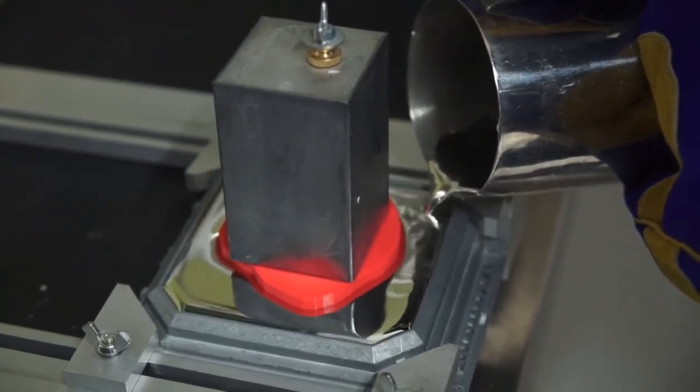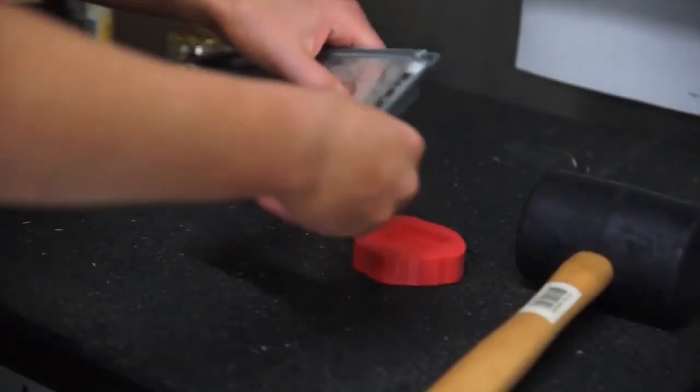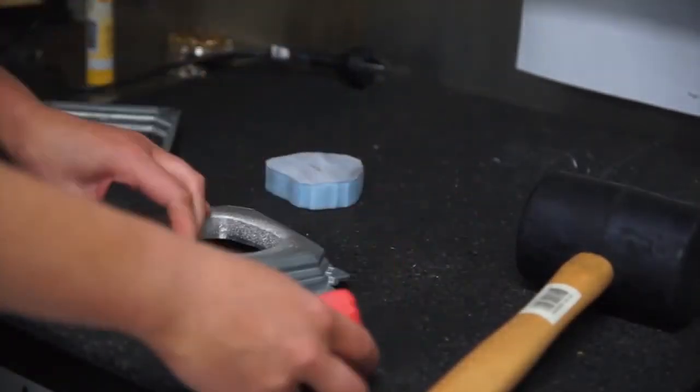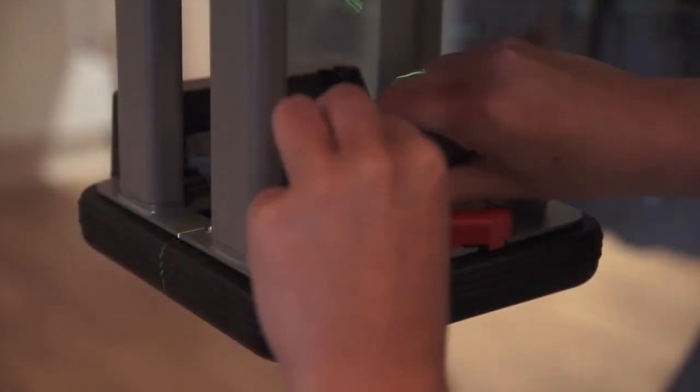No other preparations necessary. Once the alloy shape has been checked by the physics department, it can be used to shape the beam for treatment.